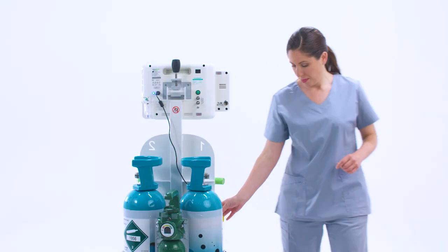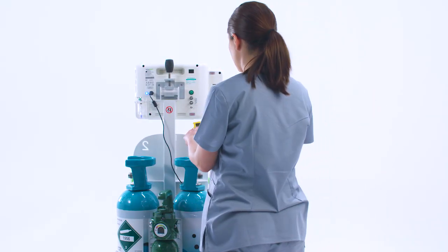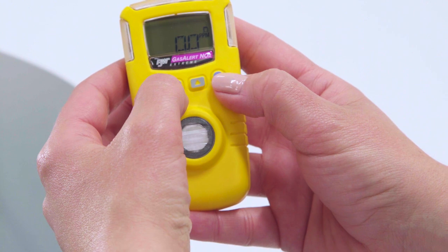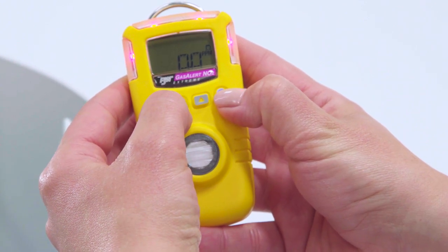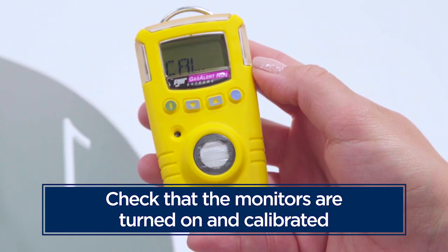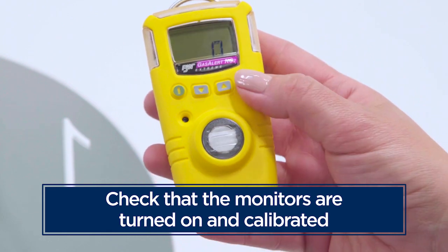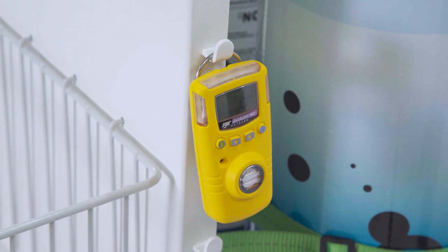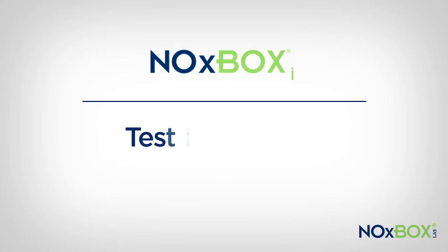The NOxBOXi system comes equipped with 2 environmental monitors which detect ambient levels of both nitric oxide and nitrogen dioxide to make sure they are within preset safety limits. Before using the system, check that the monitors are turned on and calibrated. They require a daily zero calibration, which is completed with a power on-off cycle.